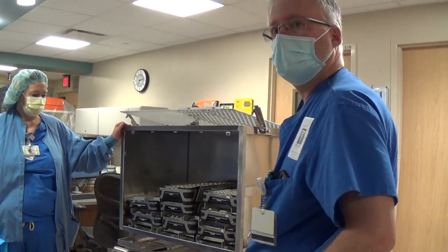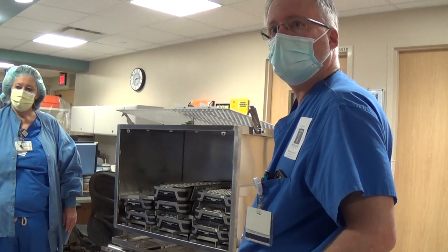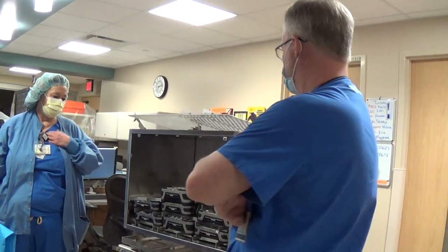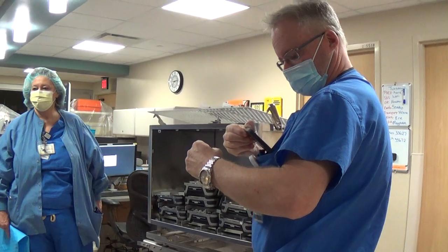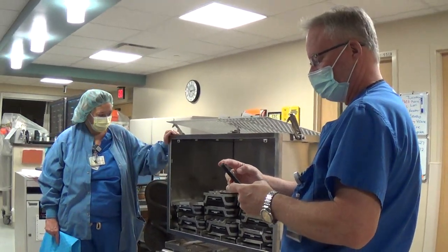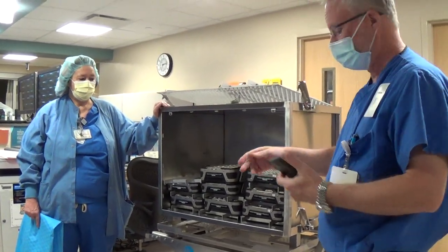What about the separators between trays? If trays are stacked on top of each other without a separator, does that make them not sterile? No, it wouldn't matter for sterility, but I would be more inclined that it would be wet if the air's not getting through by the vacuum. So it's a must that we do it diligently downstairs. And there are a bunch of these for each pod.